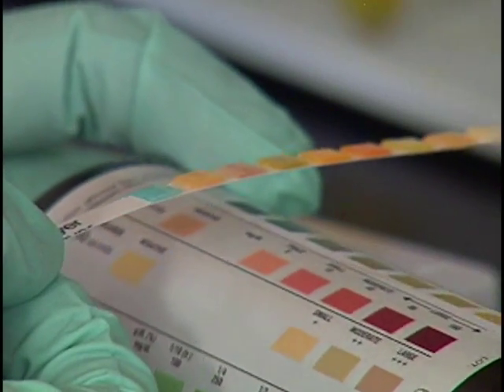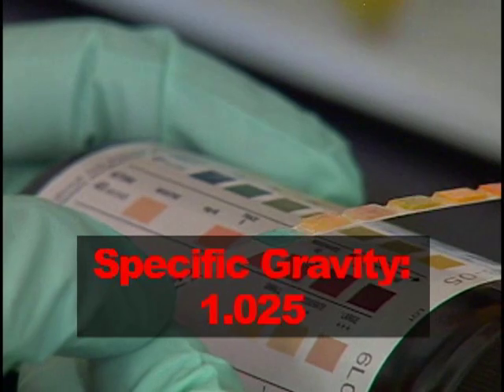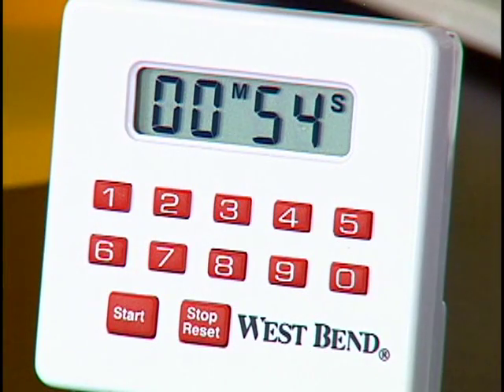Specific gravity is read at 45 seconds. The result for specific gravity is 1.025. Blood, pH, protein, urobilinogen, and nitrite are all read at 60 seconds or 1 minute.